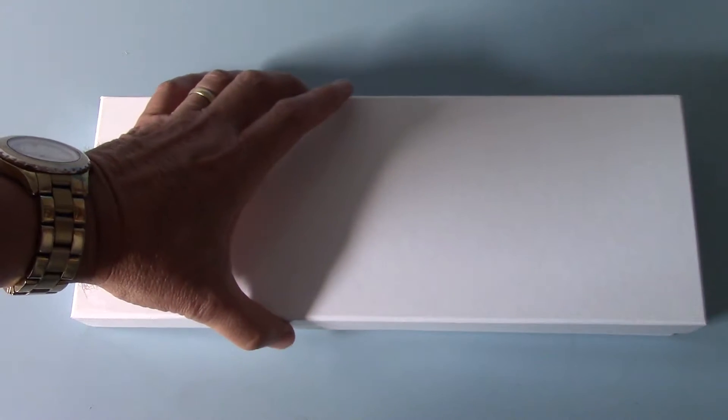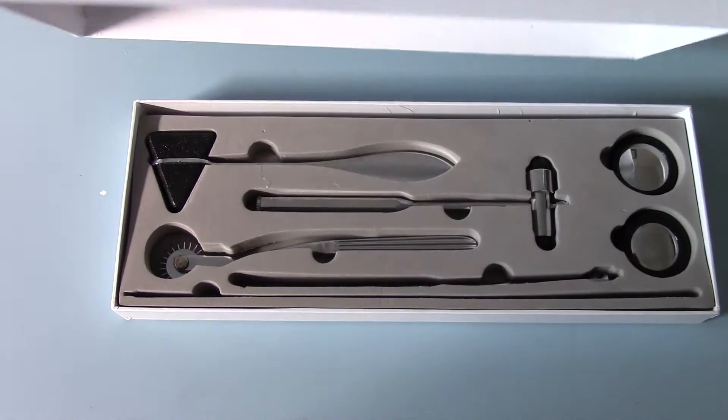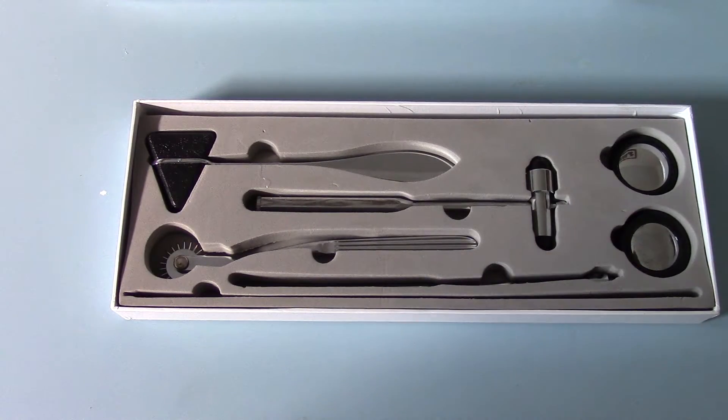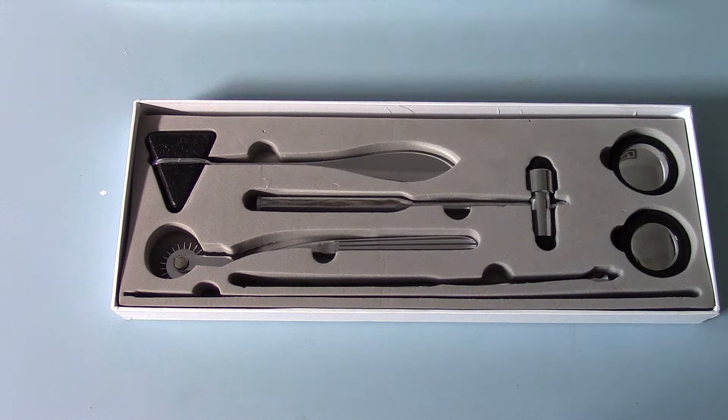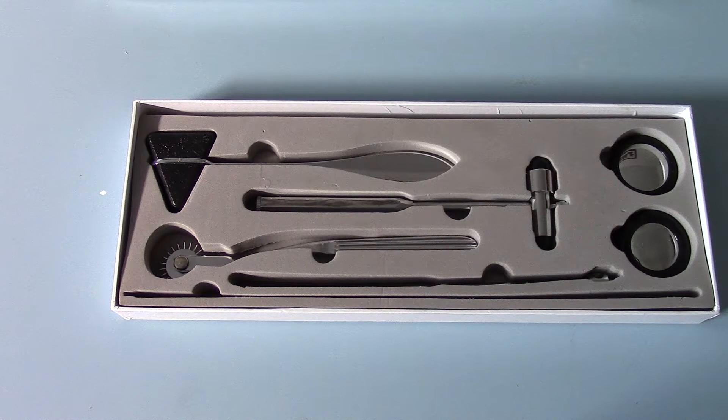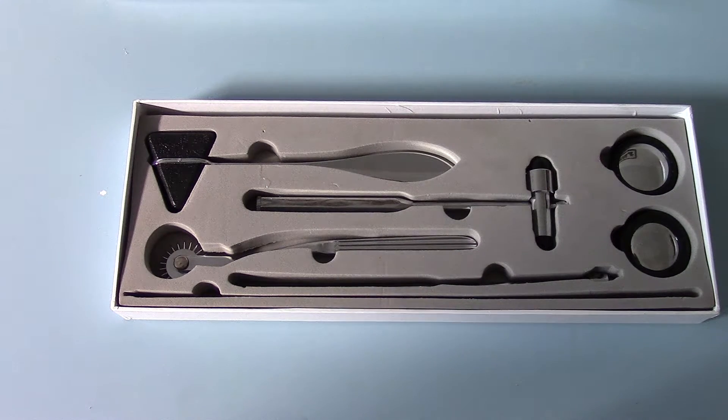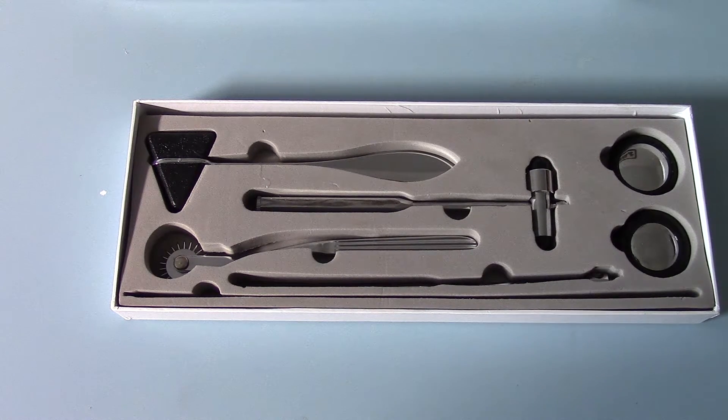Welcome to this presentation of the reflex hammer set we're suggesting for medical students. This is a complete box set available from ValueMed that comes in the box as shown here and includes a complete range of neurological and general medical examination reflex hammers, which will meet any clinical requirement that medical students or newly qualified doctors will encounter.